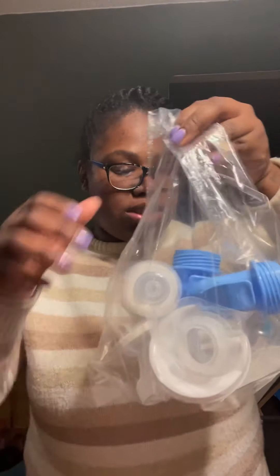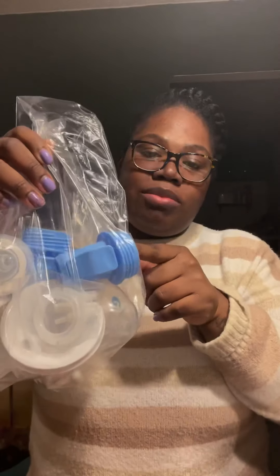Let's see if it was worth it, because the regular Bella Baby is already tiny but it's kind of bulky — smaller than a traditional pump though. Inside you get tubing, bottles, connecting pieces, stuff to pump right into those zip-lock bags they include. They also give you a bigger bag, and look at this pump — it is way smaller than the original.